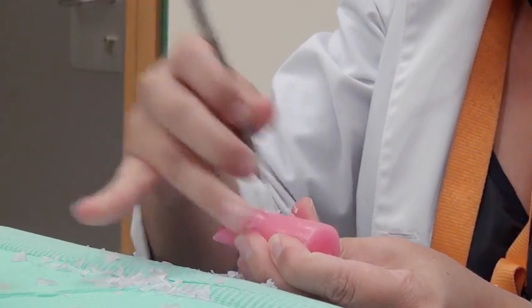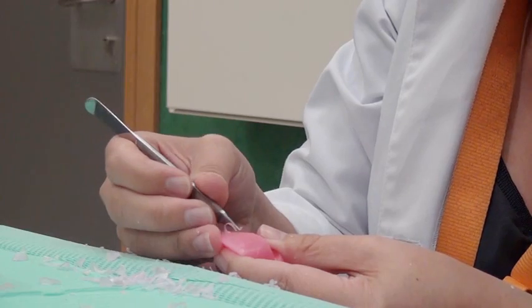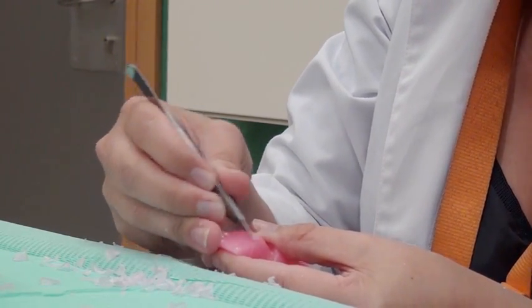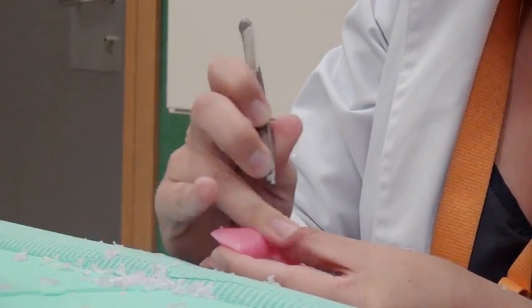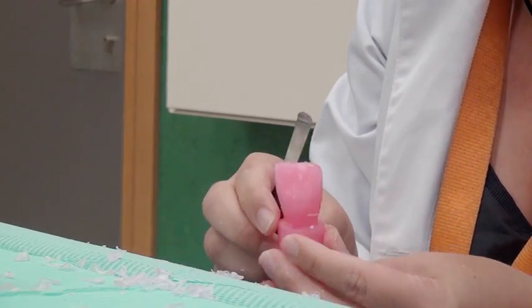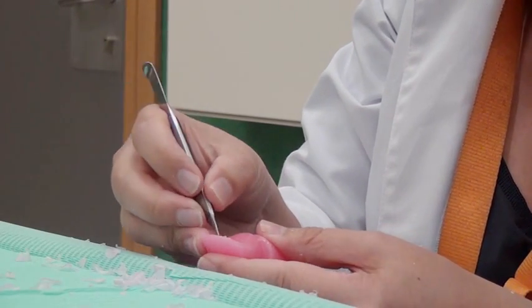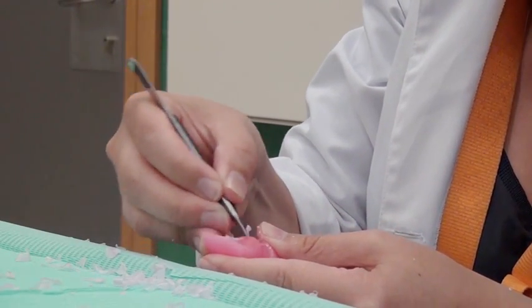Perikymata are lightly traced at the cervical area of the buccal surface. Developmental lines are also drawn on the buccal surface: a short distal one and a longer mesial one. Marginal ridges and palatal pits and ridges are carved.